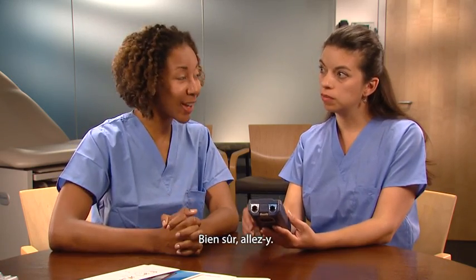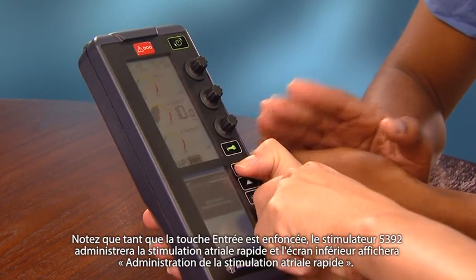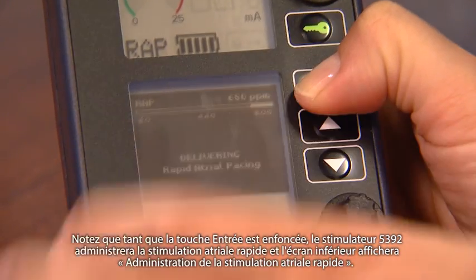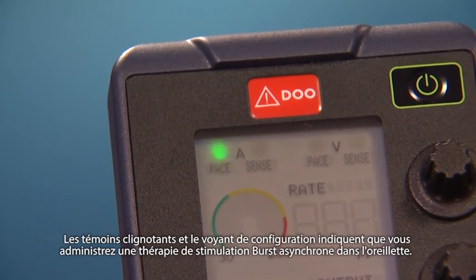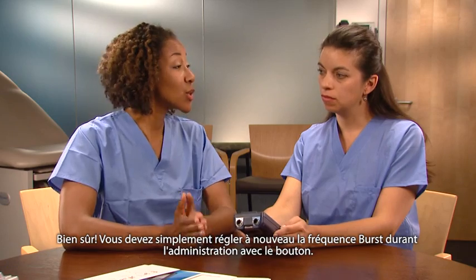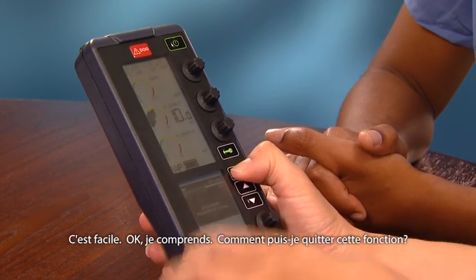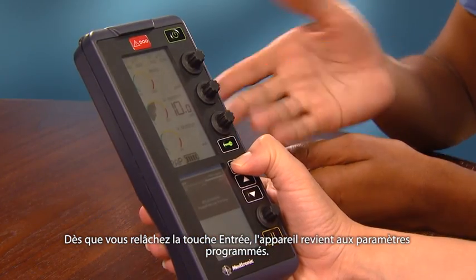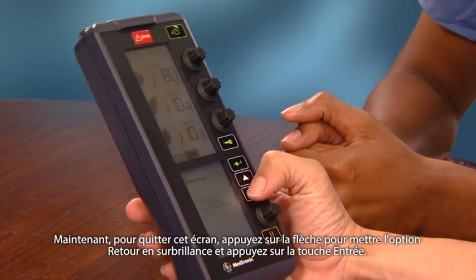Can I try it? Sure, go ahead. Notice as long as the Enter key is depressed, the 5392 will deliver rapid atrial pacing and the lower screen changes to display 'delivering rapid atrial pacing.' The flashing lights and setup indicator show that you are delivering asynchronous burst pacing in the atrium. Can I adjust the burst rate during delivery? Certainly — just readjust the burst rate during delivery with the dial. Once the Enter key is released, it reverts to programmed settings. To exit this screen, press the arrow to highlight Back and press the Enter key.